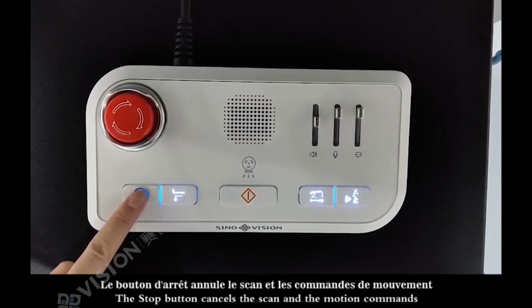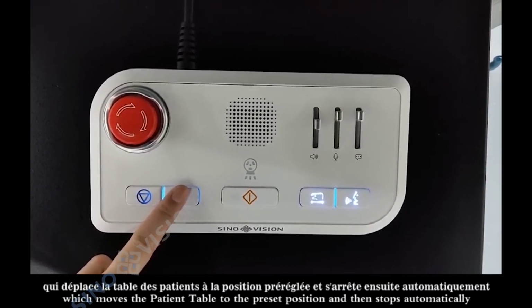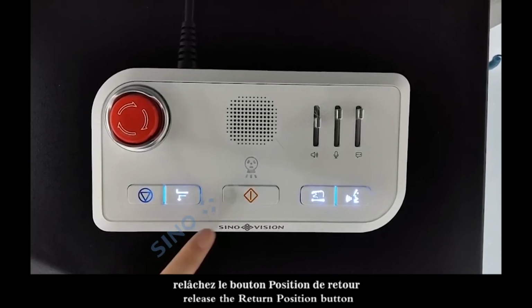The stop button cancels the scan commands. This is the return position button, which moves the patient table to the preset position and then stops automatically. To stop the table movement, release the return position button.